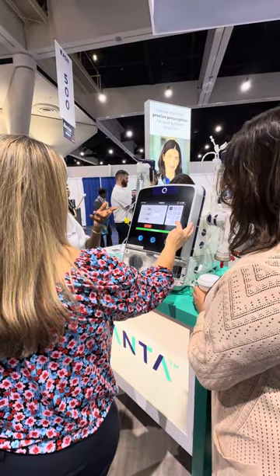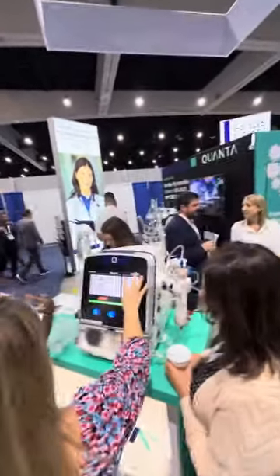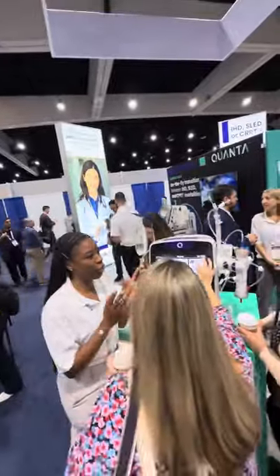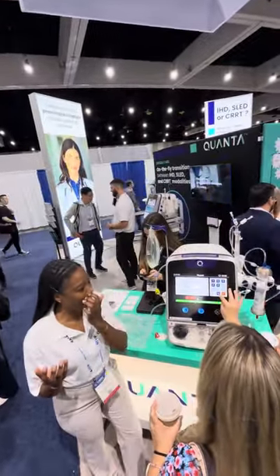A good thing about this machine — you see how these numbers are in blue? That's the only number that you can touch. So you can put in something like 200 and go back.